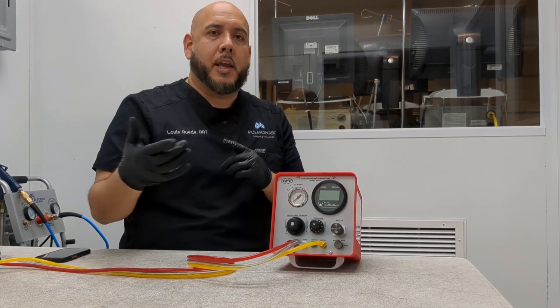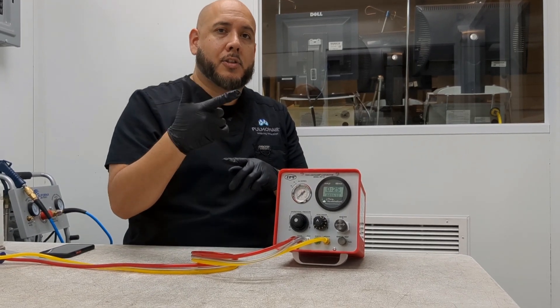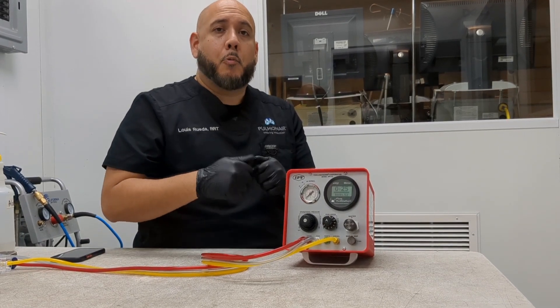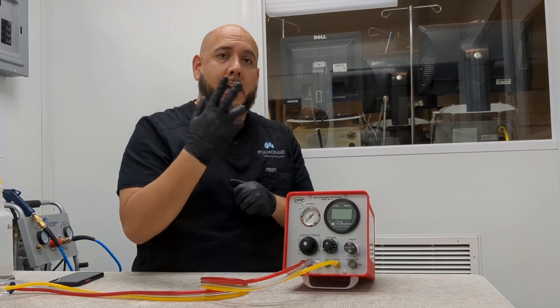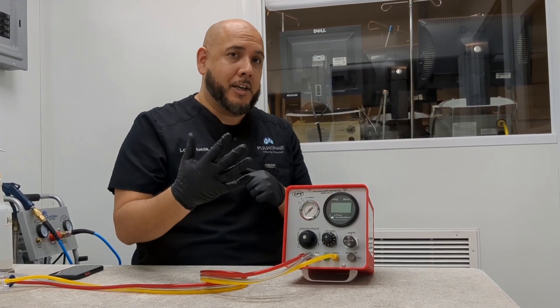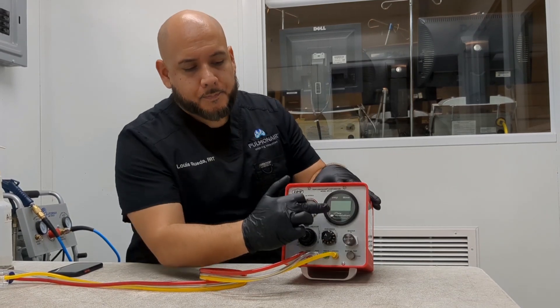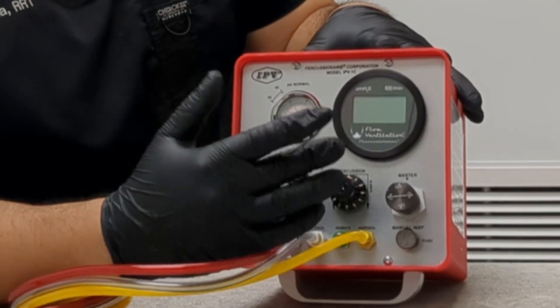The philosophy is going to be going fast, then slow, then fast again. If we follow it in three phases: when we go fast we're going to spend five minutes there, then we're going to turn the dial back to a slower position for five minutes, then we're going to go fast again for five minutes — giving us our full 15 minutes.